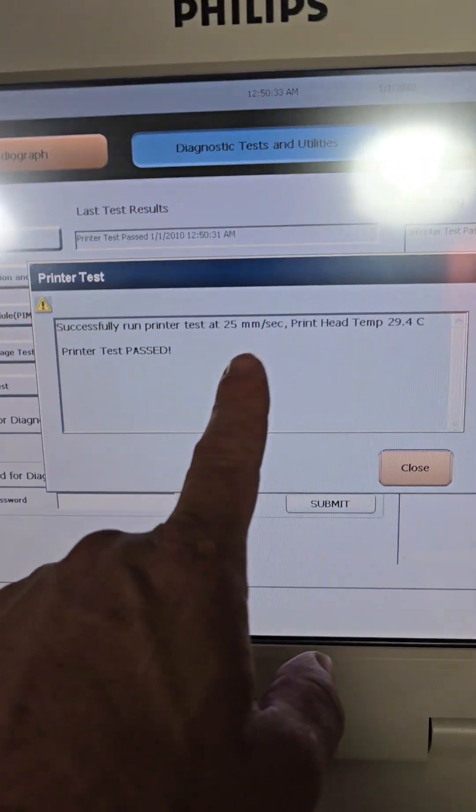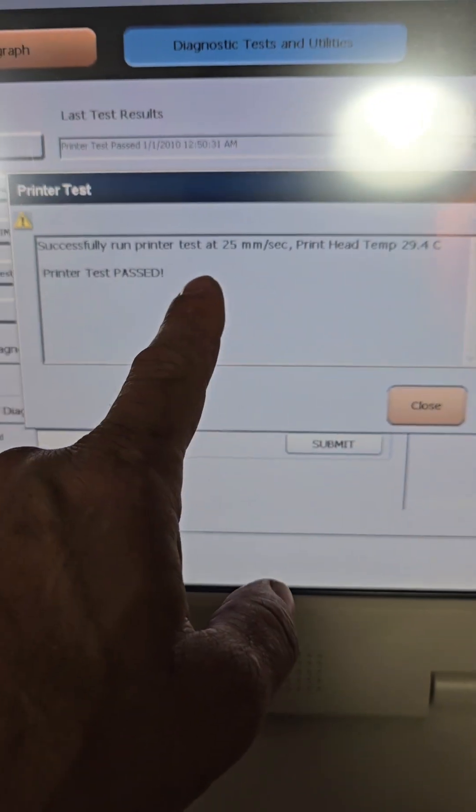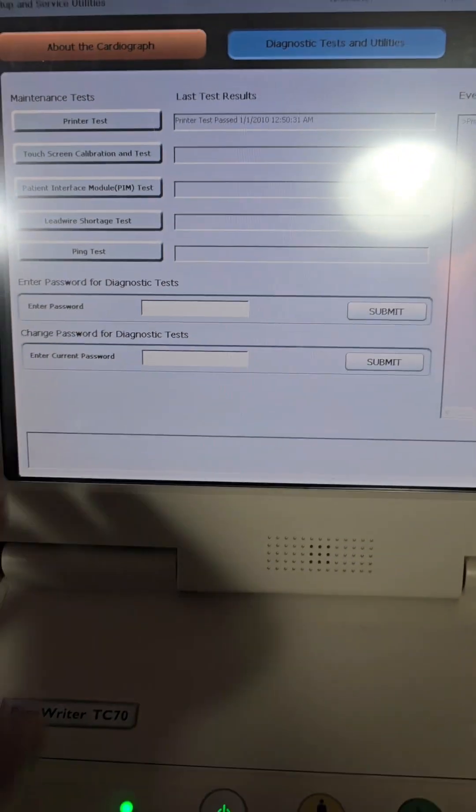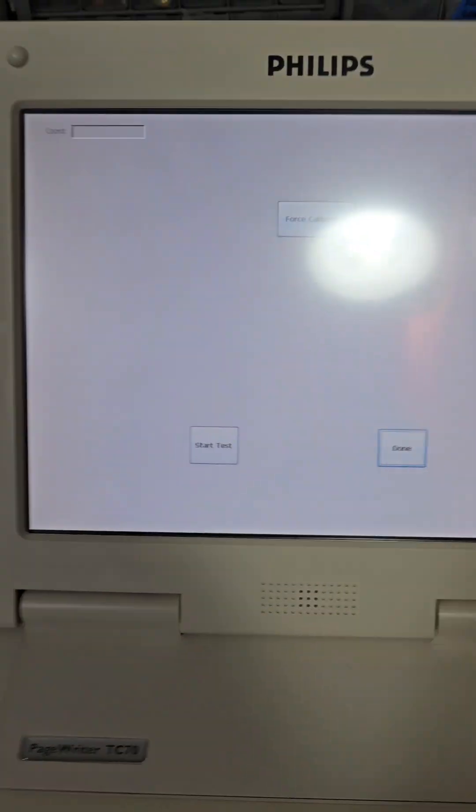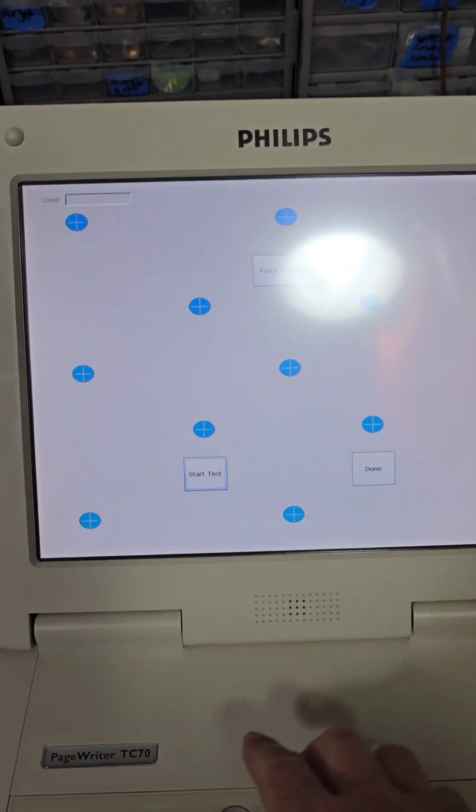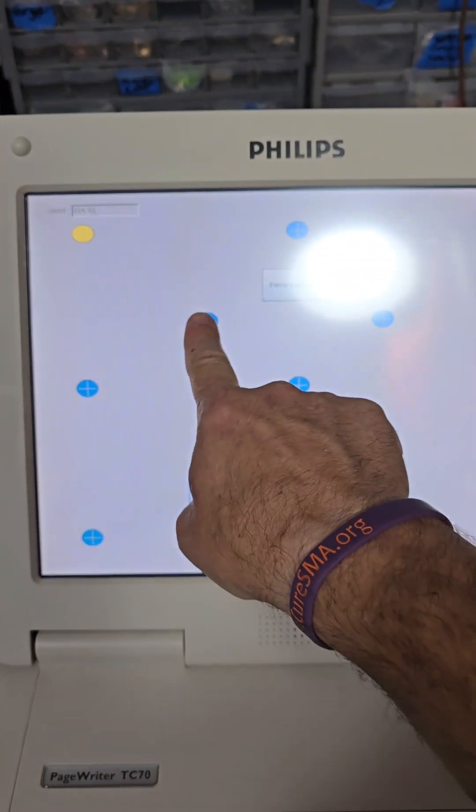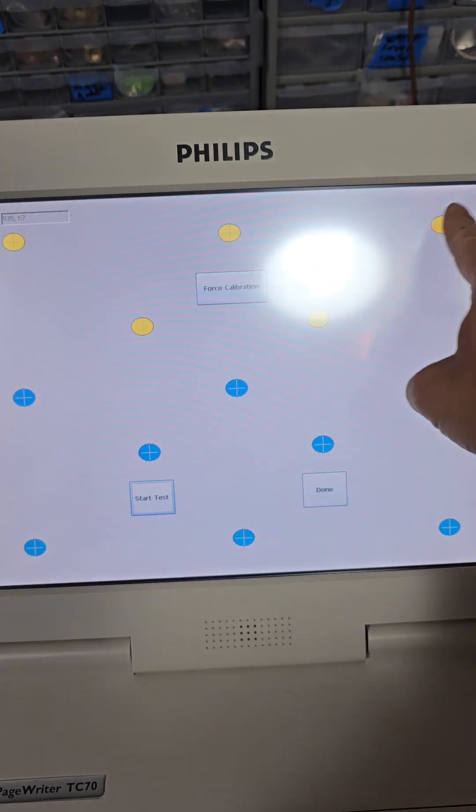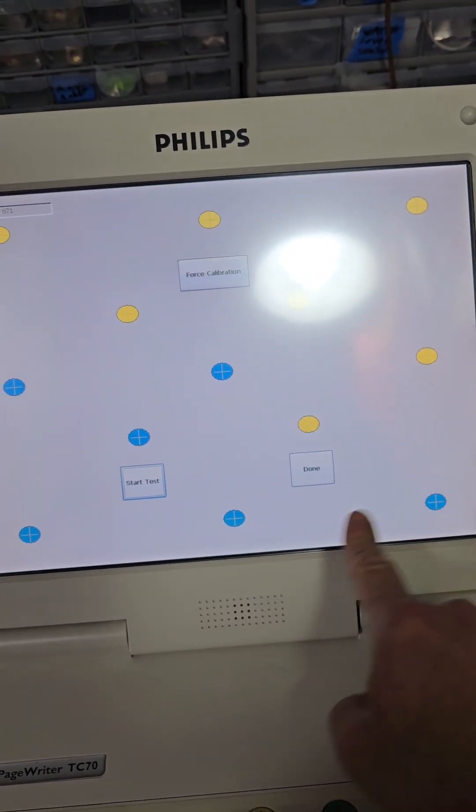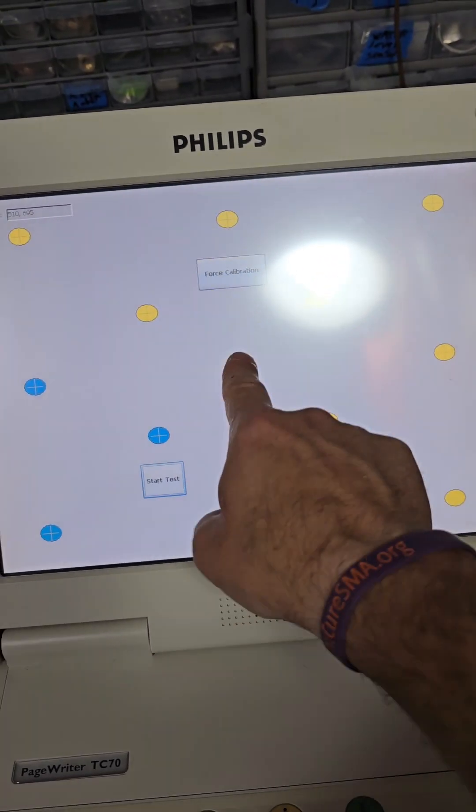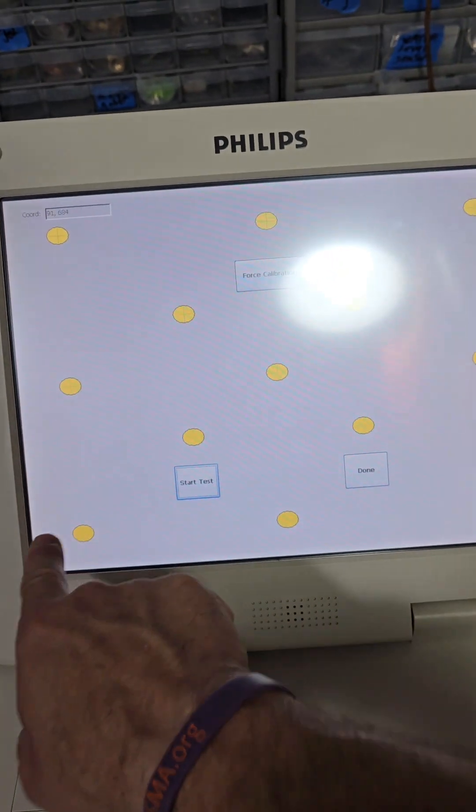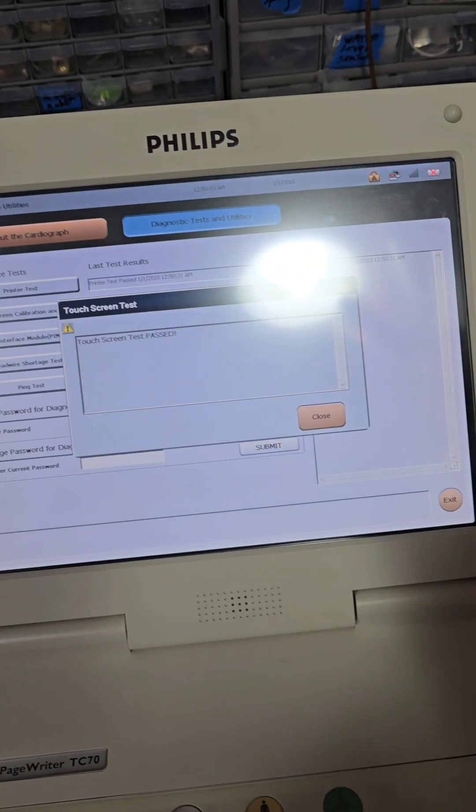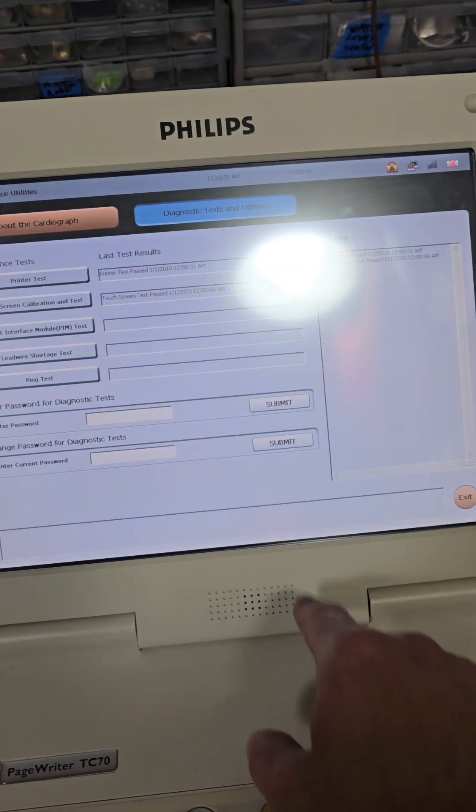So, I'm going to test paths. There's your temperature. There's the speed we're at. Your touch screen calibration. I'm going to just press the center of these little circles. Missed. Could you find an easier calibration for a touch screen?